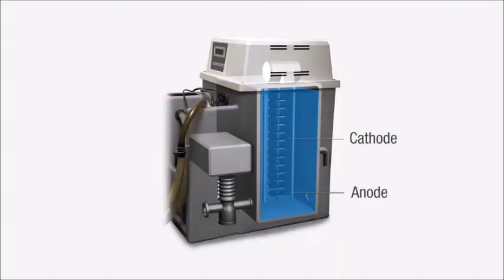The silver that is used in X-ray films is an expensive and non-renewable resource, so it must be recycled for economic and environmental reasons. It can be salvaged from unprocessed film, fogged film, or from processed film when the image is no longer required.